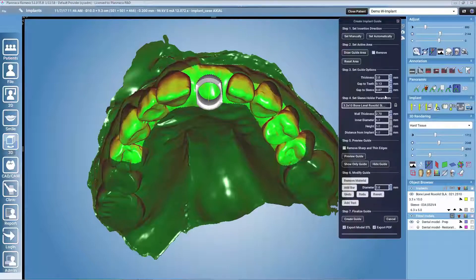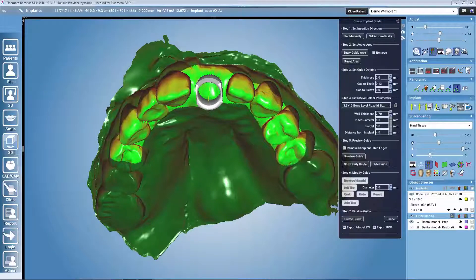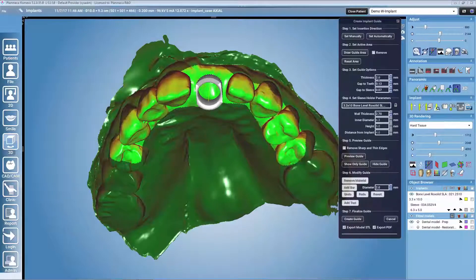After this, in step three we have guide options including a thickness value. Generally, a thickness between 2 and 3 millimeters is recommended, and you can choose that freely. There are also two gap parameters that affect the fit of the sleeve and the fit of the guide — those may need to be adjusted depending on which 3D printer you will be using. By default the parameters are set for our Creo 3D printer.